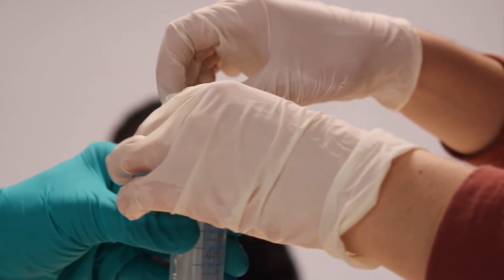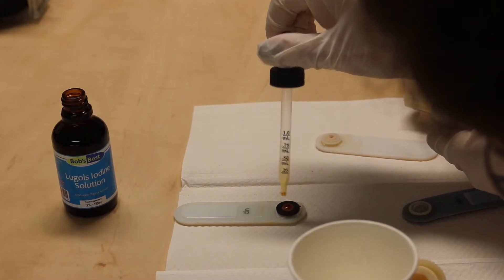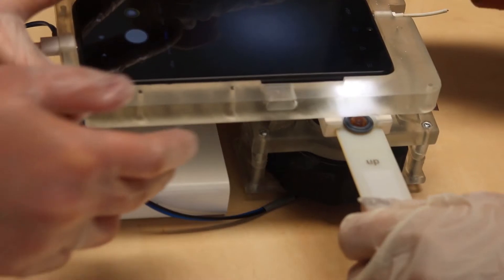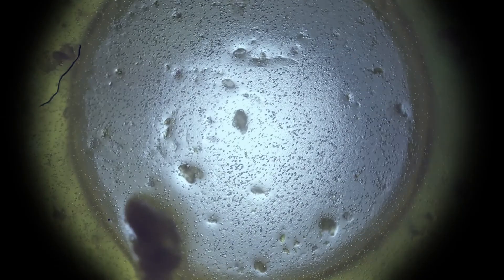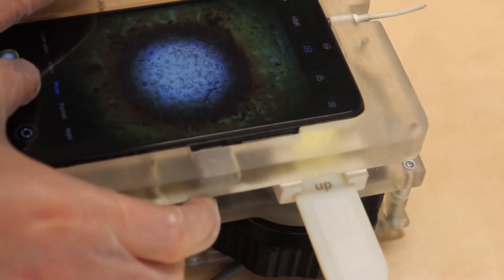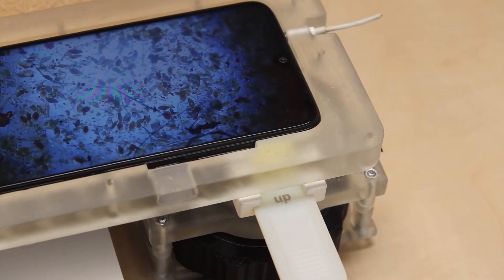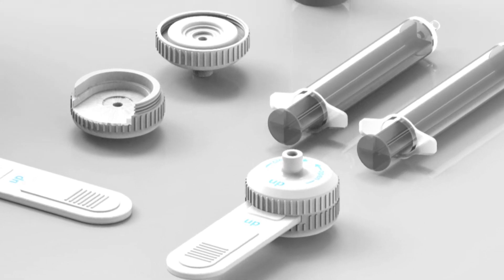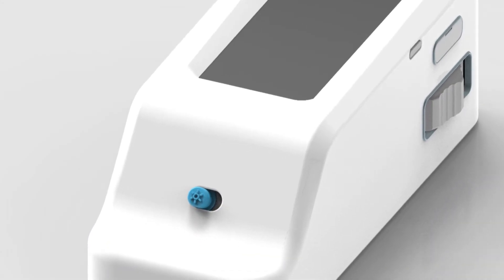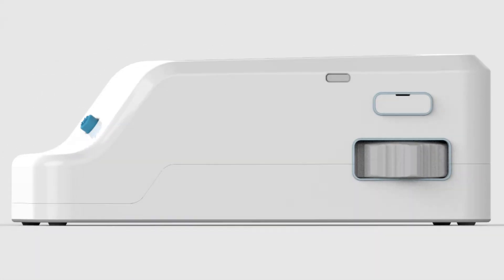With real eggs and real urine, we are able to create a high quality image. A new leak-proof sample preparation device, in combination with an innovative manually focused schistoscope, designed to empower healthcare workers.